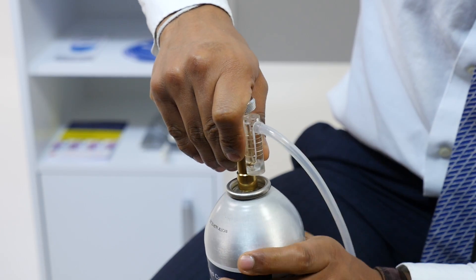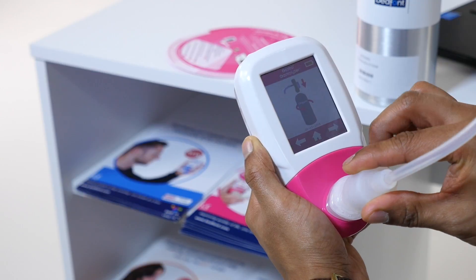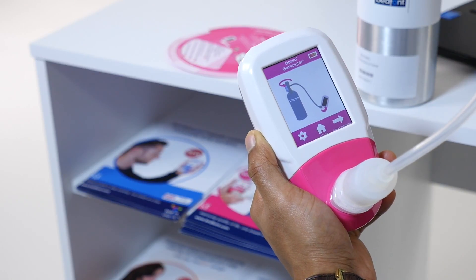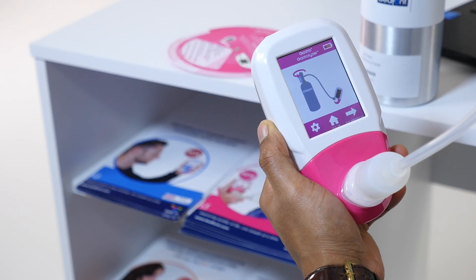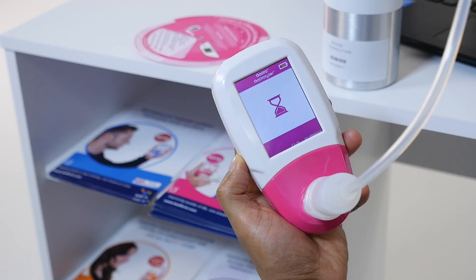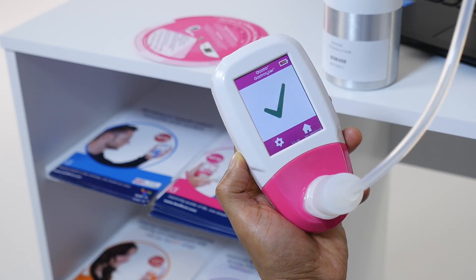To start calibration, click Settings and then the calibration icon. The GastroPlus will zero automatically while the egg timer is shown. When zeroing has finished, the first step of the calibration process will be shown on screen. Follow the on-screen instructions to finish the calibration process. Gas flow should be set to 0.5 liters per minute. If calibration has been successful, a green tick will appear on screen and you can return to the home screen.